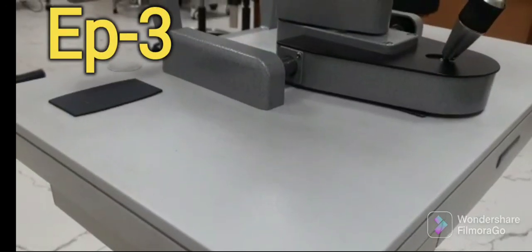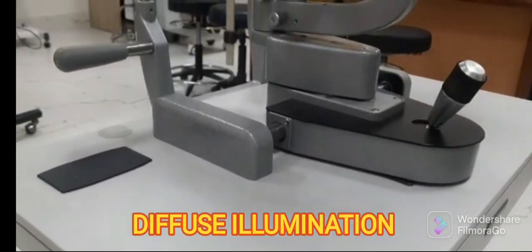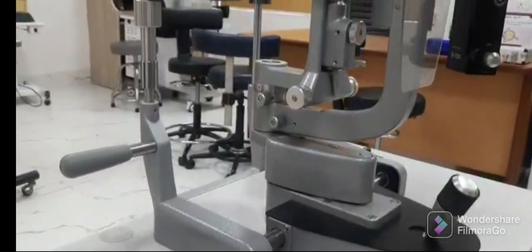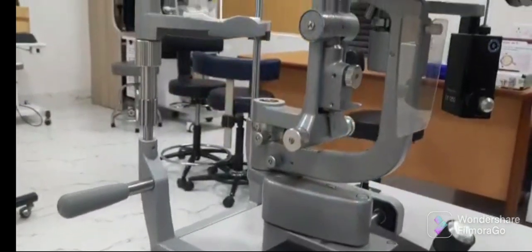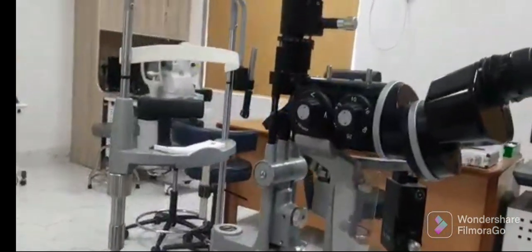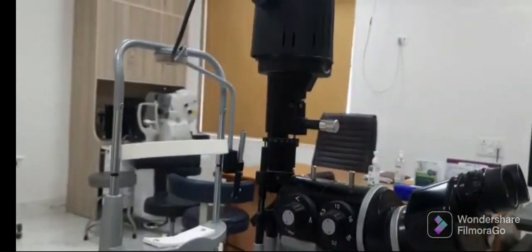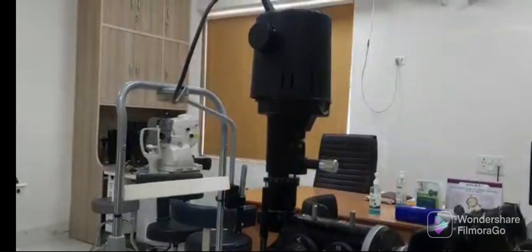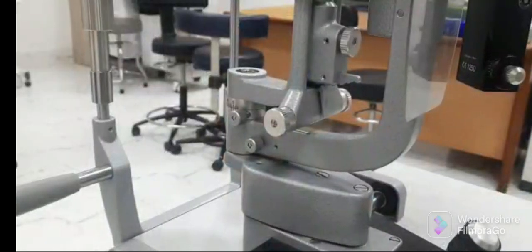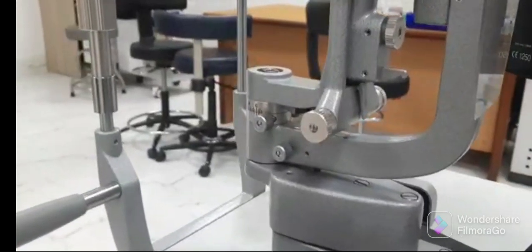Hello friends, welcome to the video series lecture on slit lamp. This is the third part, in which we will discuss diffuse illumination. We will cover this video in two parts: in the first part we will cover the setup, and in the second part the examination of ocular structures to be examined.